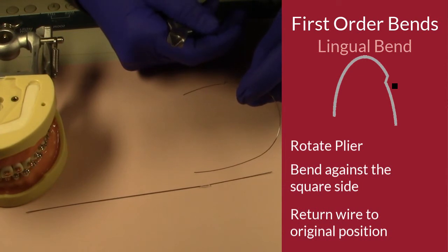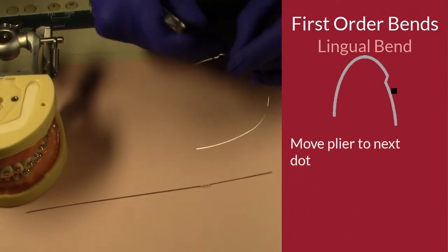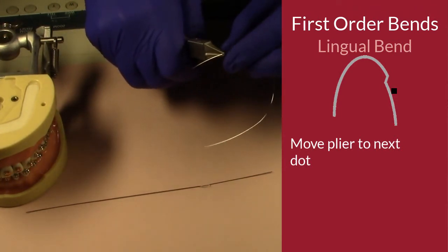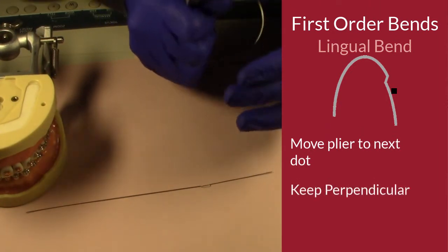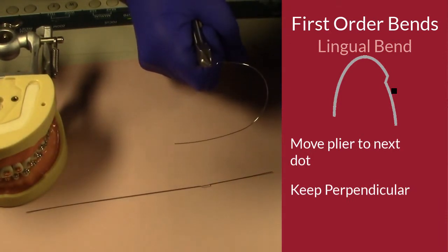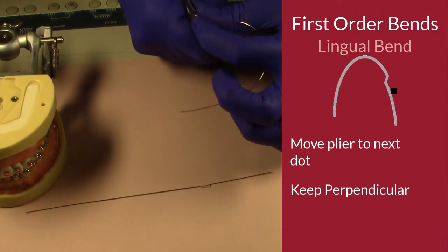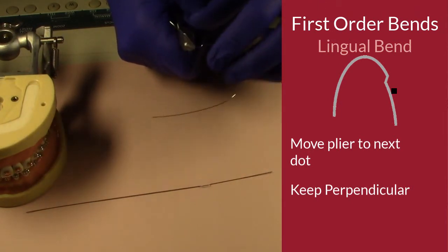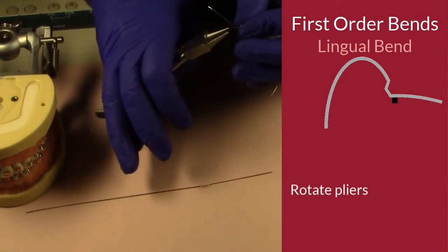Now I'm just going to remove that plier so I can show you our first little table leg. It's about 45 degrees. Now I'm going to move my plier, keeping the square side on the part toward the cheek, to the next little dot right there, keeping it perpendicular again. All first order bends are made with your plier perpendicular to your arch wire. I'm going to bend back at about 45 degrees, keeping it in the same plane. I was off a little bit there, so I better correct it. And then I'm going to rotate my plier because now I'm going to come back and put it all back in the same plane again.